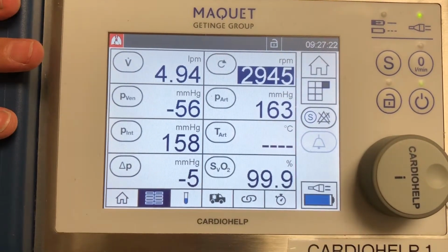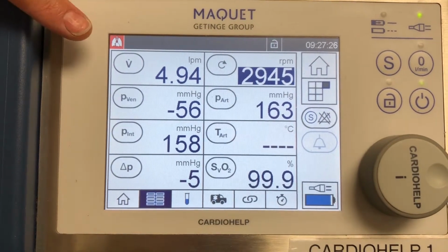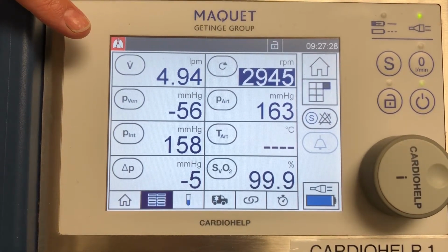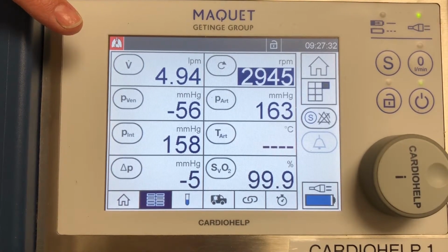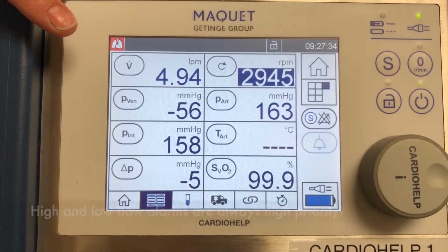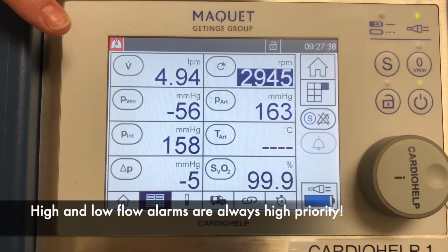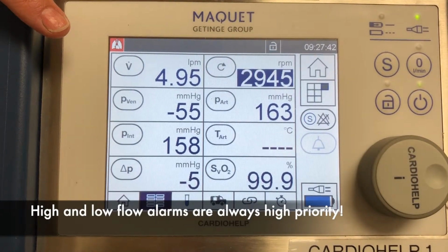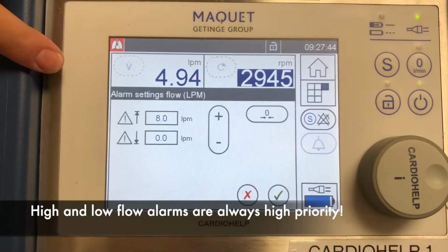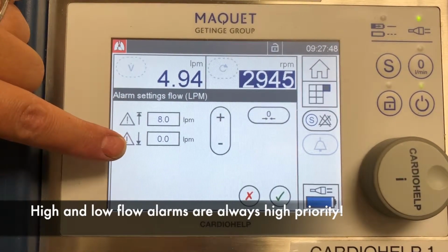Now, going over the pressures. Some of these pressures are set as only high priority. One of them is your flows. Your flow ranges are always high priority. You do not have a low priority setting because it's very important for us to know the changes in your flow. That's all you're doing on ECMO, providing flow. So when you go on this screen for the flow, you see high priority and low priority, and that's it.